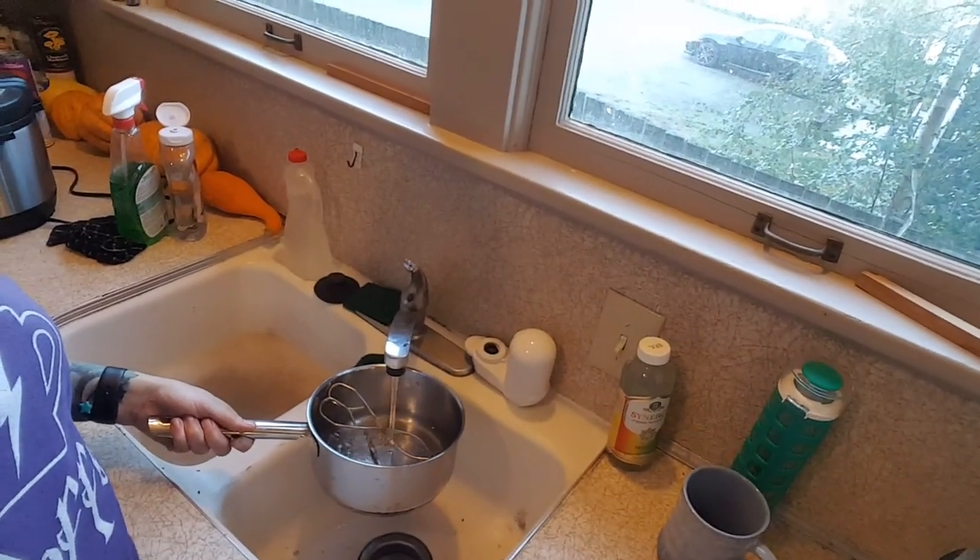So I have my instruments. I've put them in the pot. I haven't decided which would be best — to put them in the pot first or not. I don't want anything to splash if they're already in the pot, but I will just be careful for now. That didn't splash at all. So I'm filling it with water and it said on the guide to do two inches over.